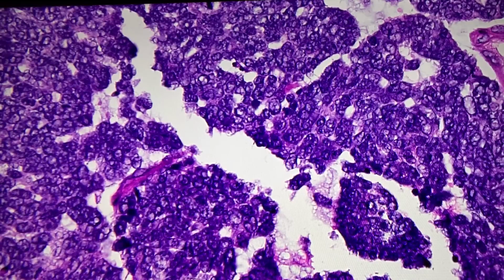Can anybody guess, based on this morphology, what is a little bit of a clue in this morphology? Erica, is that a fair question? I heard a whisper from behind. Oh, we were just talking about the washed out nuclei. Tell us. Merkel. What is that? The Merkel look. Erica, I don't know if you remember this.